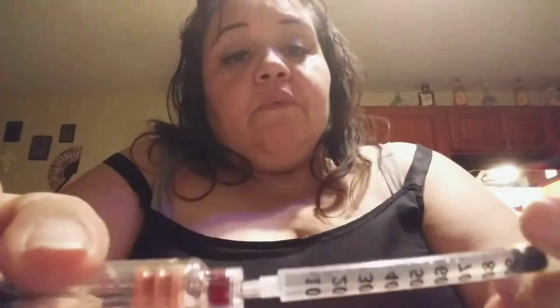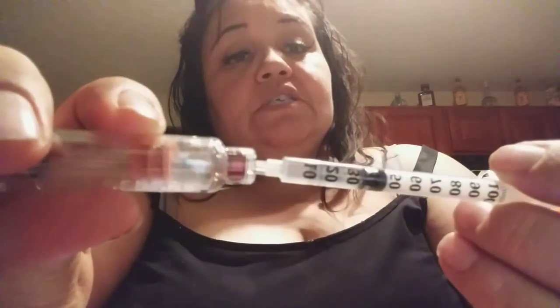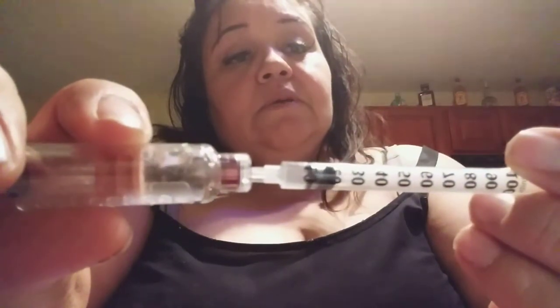So this is what I'm going to do. See that little red dot here — this is where the needle tip is going to go inside. By going inside — there we go — I'm going to push it. Watch this, that little plastic piece right here, it's going to start going. Do you see the syringe pushing the insulin inside the other one? There it goes. Now I'm going to get some more because it's not there yet. Looks like it's about 100, maybe even a lot more.